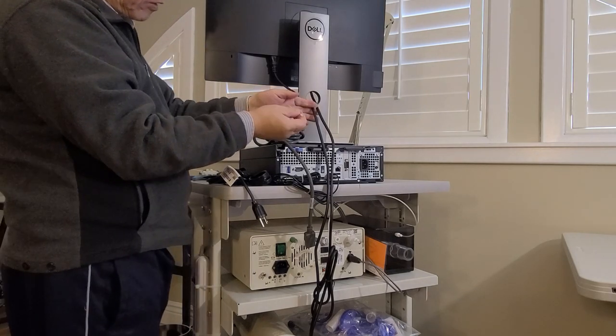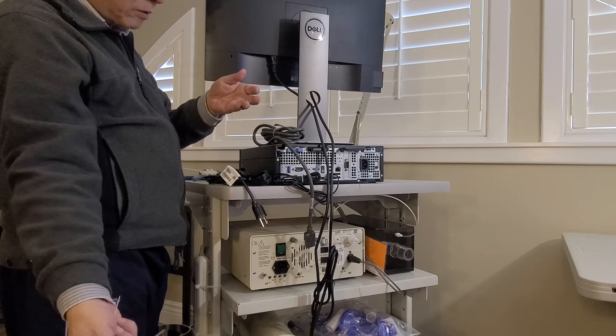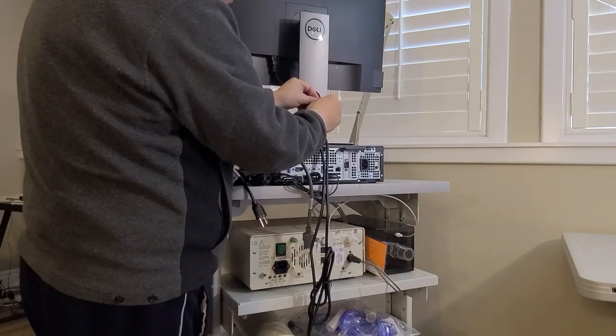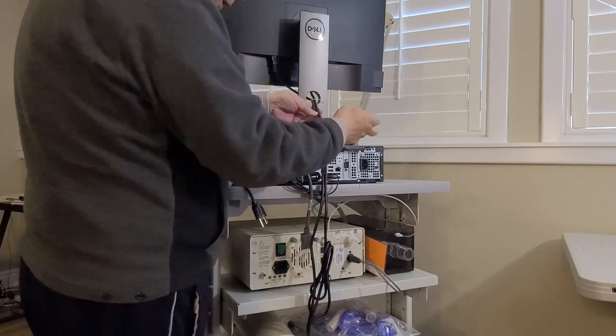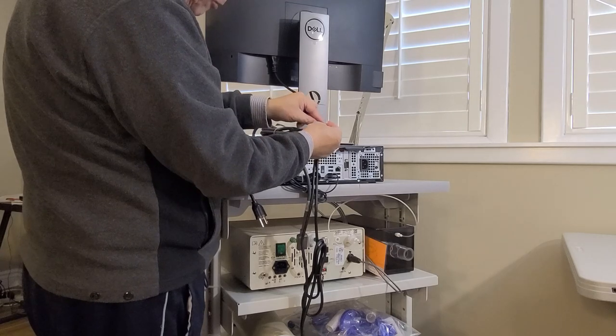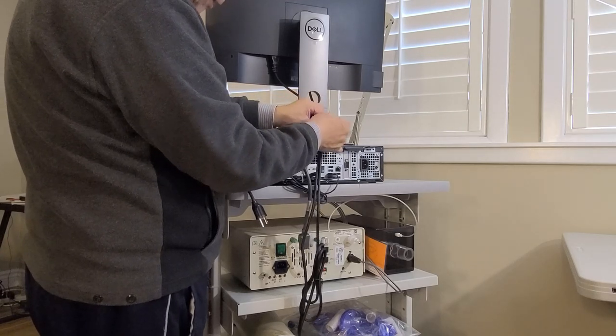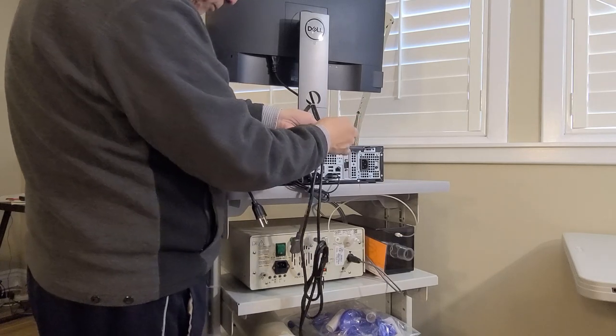Which zip tie is that? Short. Oh, four inch? Yeah. Okay. So we need to make two ties over here. And again, this is just purely to make the cable look better, so really for cosmetic purposes.